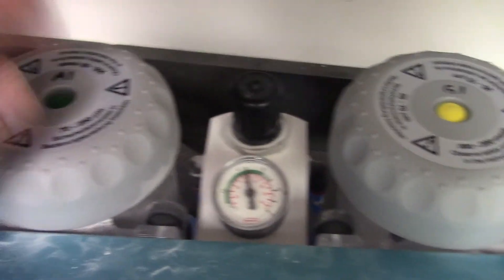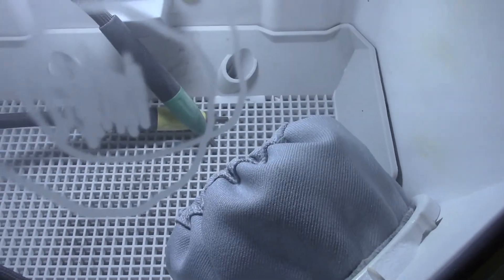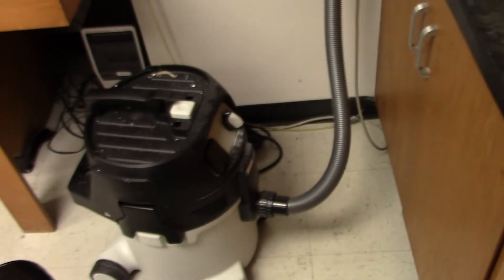Here is where we keep the canisters of alumina and glass. Inside there is the button for switching and the two nozzles. And right over there is the vacuum cleaner that you turn on and off. And that's our sandblasting machine.